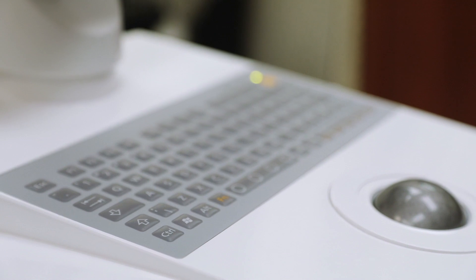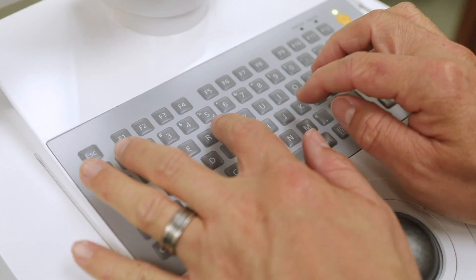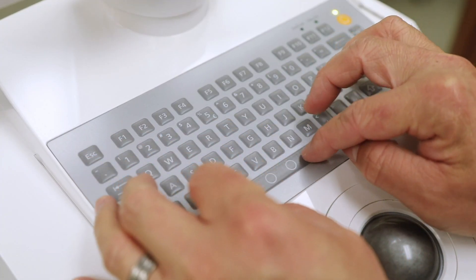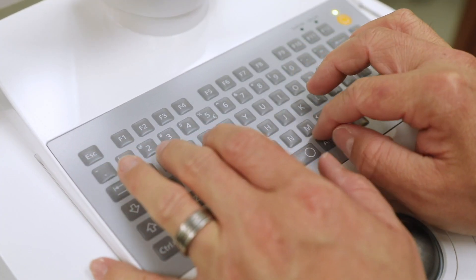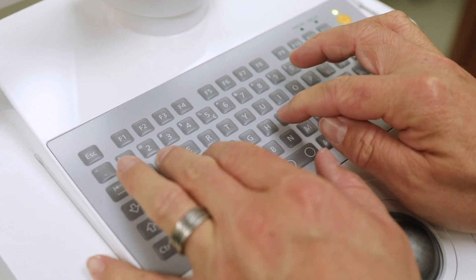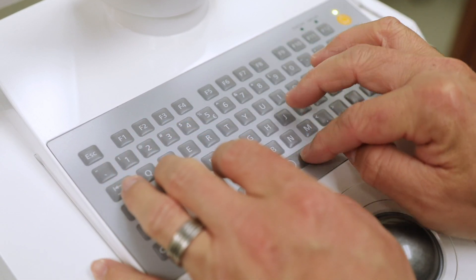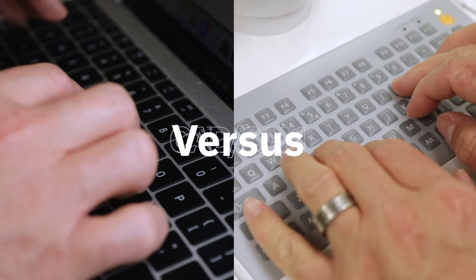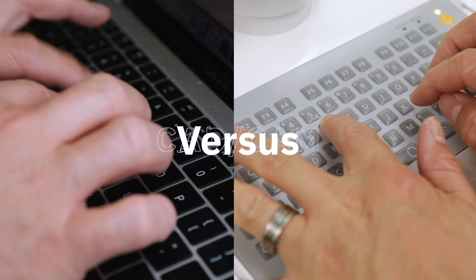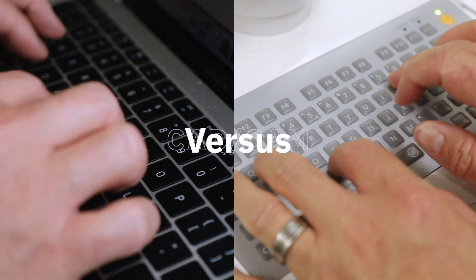The keyboard has many of the standard features you would find on any keyboard, but it can feel a little weird when you first use it. In my experience, I find that I cannot type as fast on this keyboard as I can on other computers.